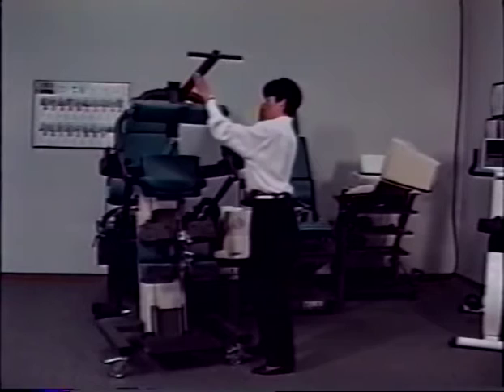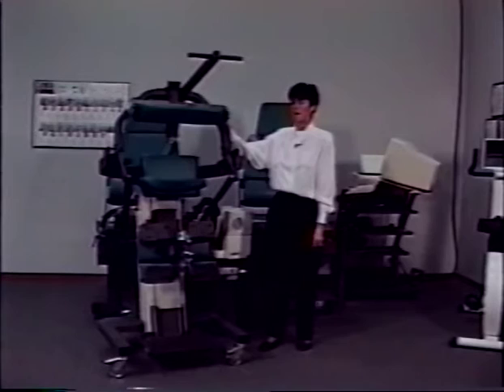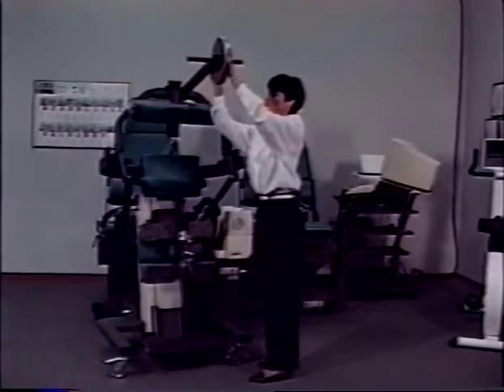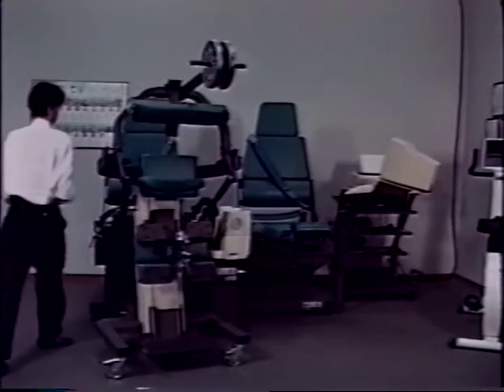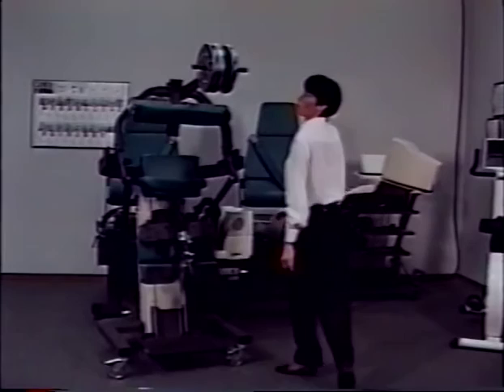At this time, the input arm is locked in place. You need to load the calibration T-bar with 75 pounds of weight — place 25 pounds on one side of the calibration T-bar and 50 pounds on the other. Each of these weights is certified to weigh exactly 25 pounds apiece and are only to be used during calibration. When you have loaded the weights, press F12 again.